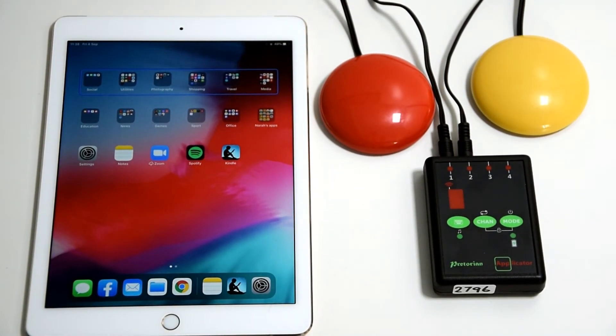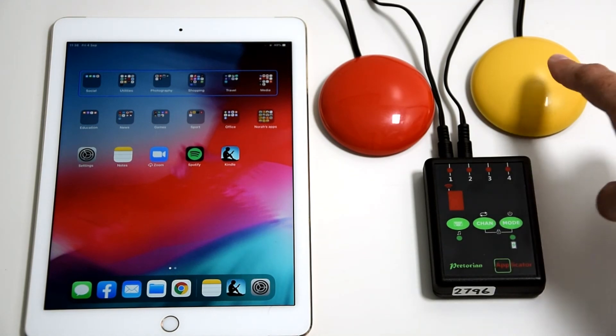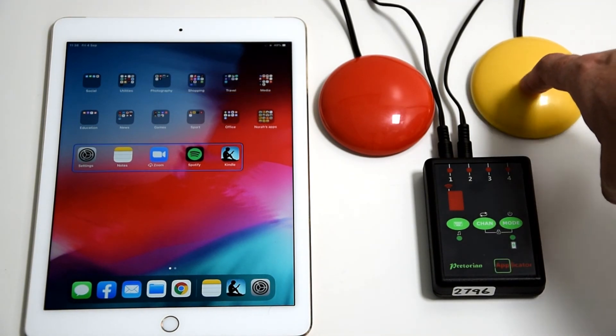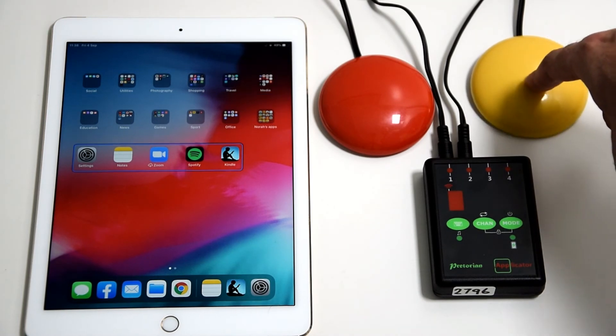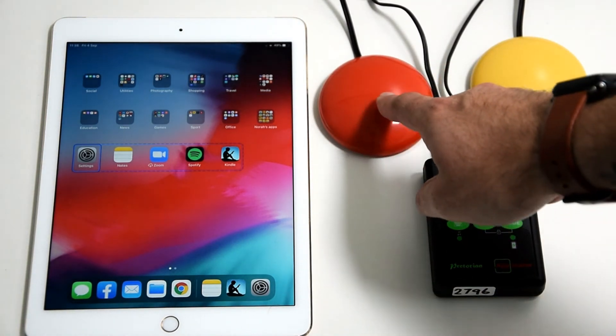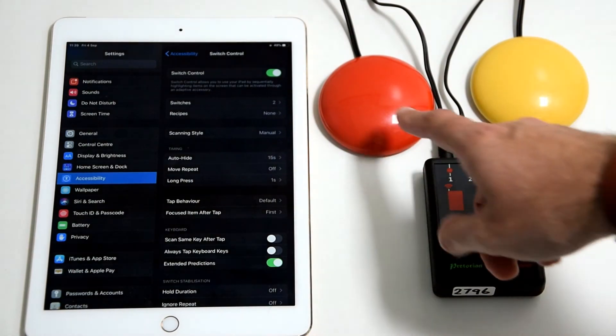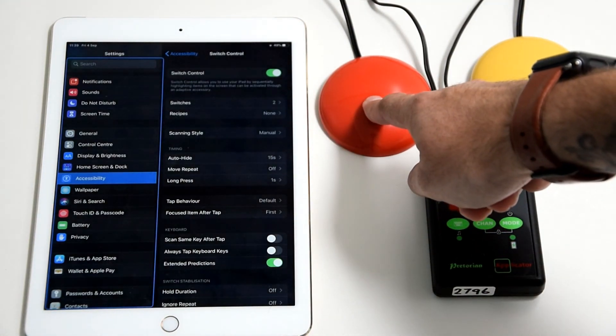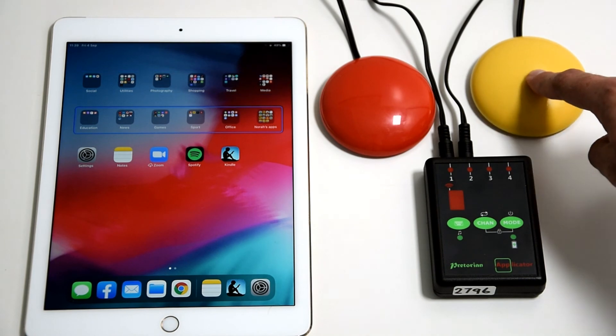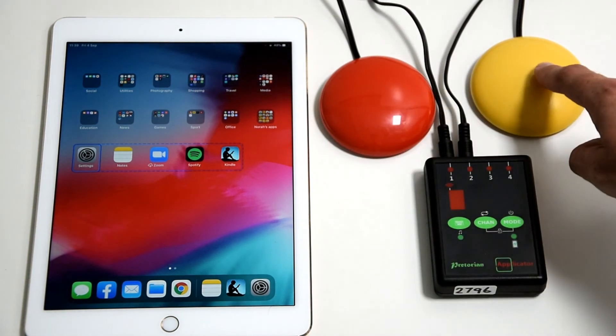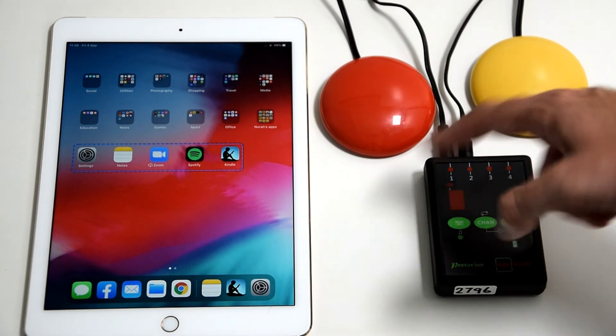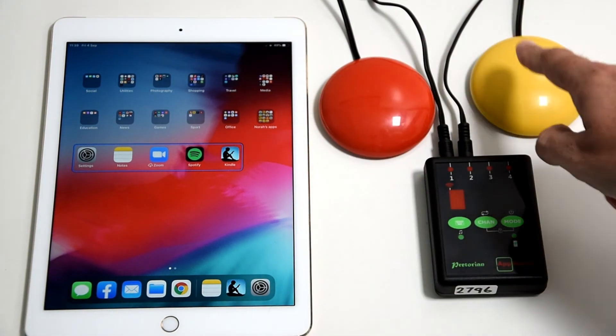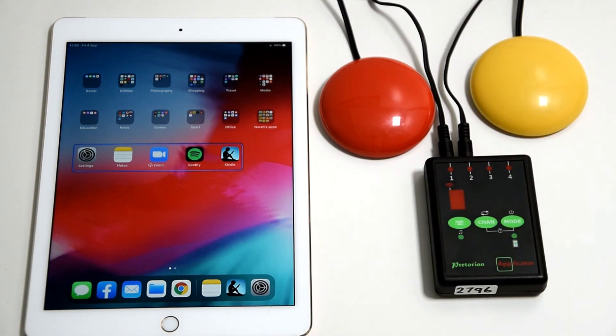You'll see the blue rectangle that goes around all your apps and icons on your screen. The yellow one will scan across and move down as appropriate, and then when you want to select within, you press the red button. You can select a menu within, and holding down the red button because it's on U takes you back to home. Once you're in a rectangle, you can scan through, and if you're in the wrong one, it takes you back to this so you can come back out and go across your menus again.